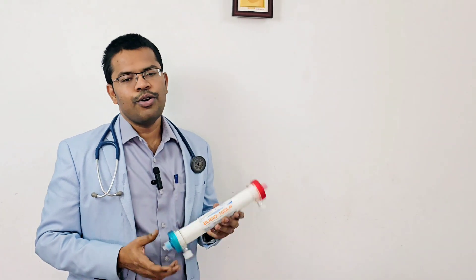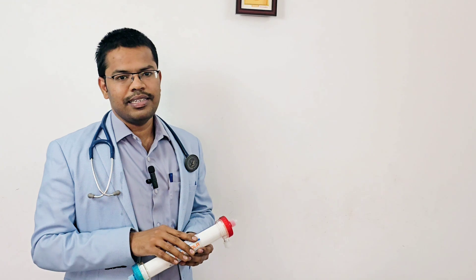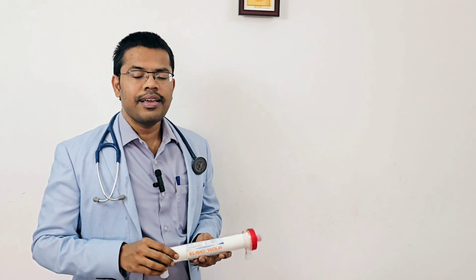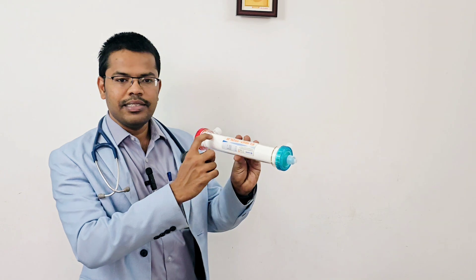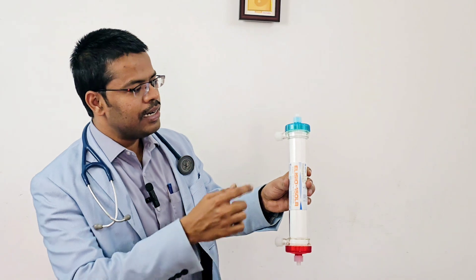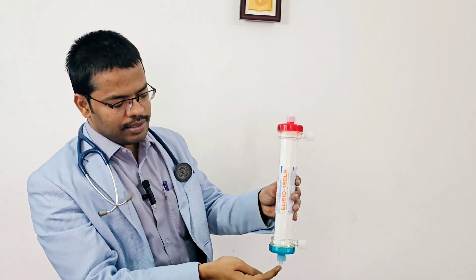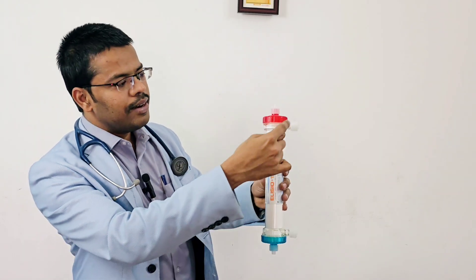This is the dialyzer, which is a hollow fiber artificial kidney. Residents often ask about the types of dialyzer. Before going into the types, we will see the five important parameters which decide the characteristics of the dialyzer. The blood enters from one side and exits on the other side; dialysate enters and exits on the opposite sides.